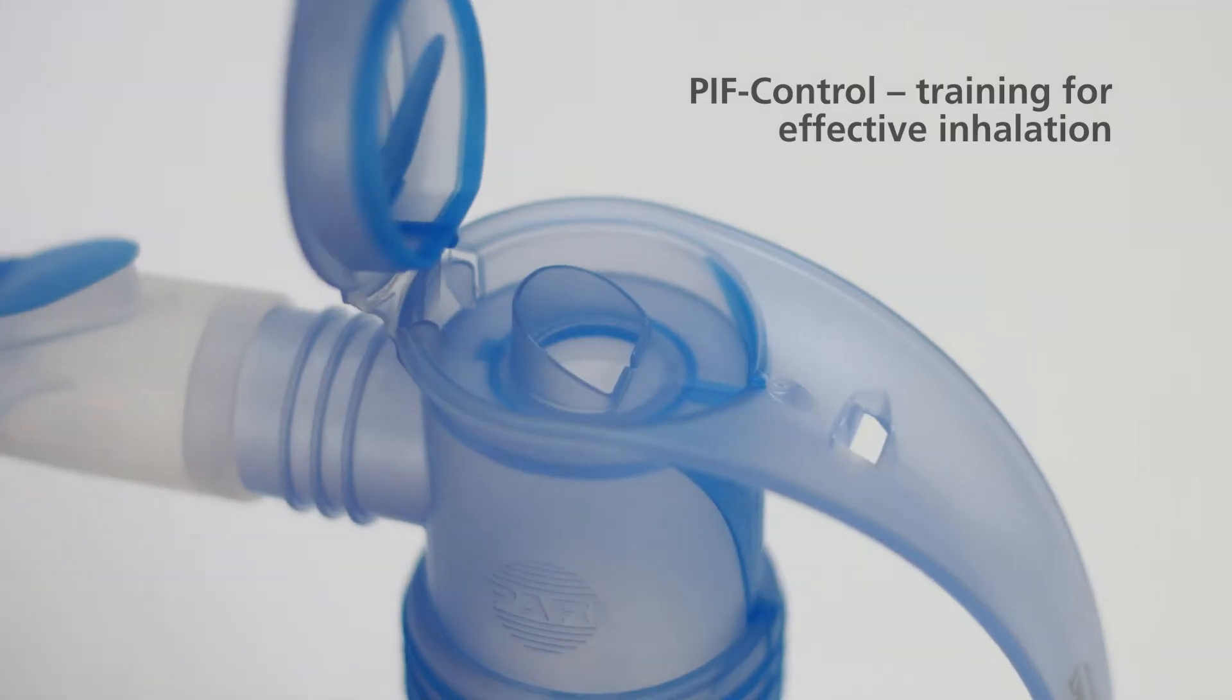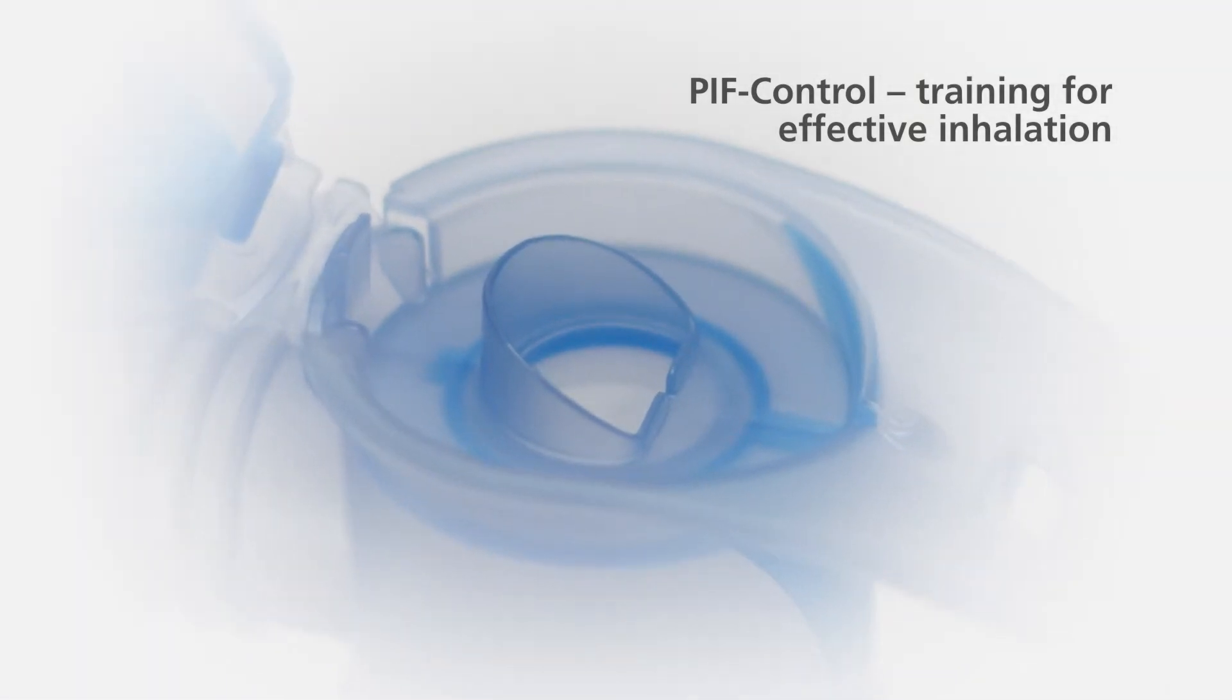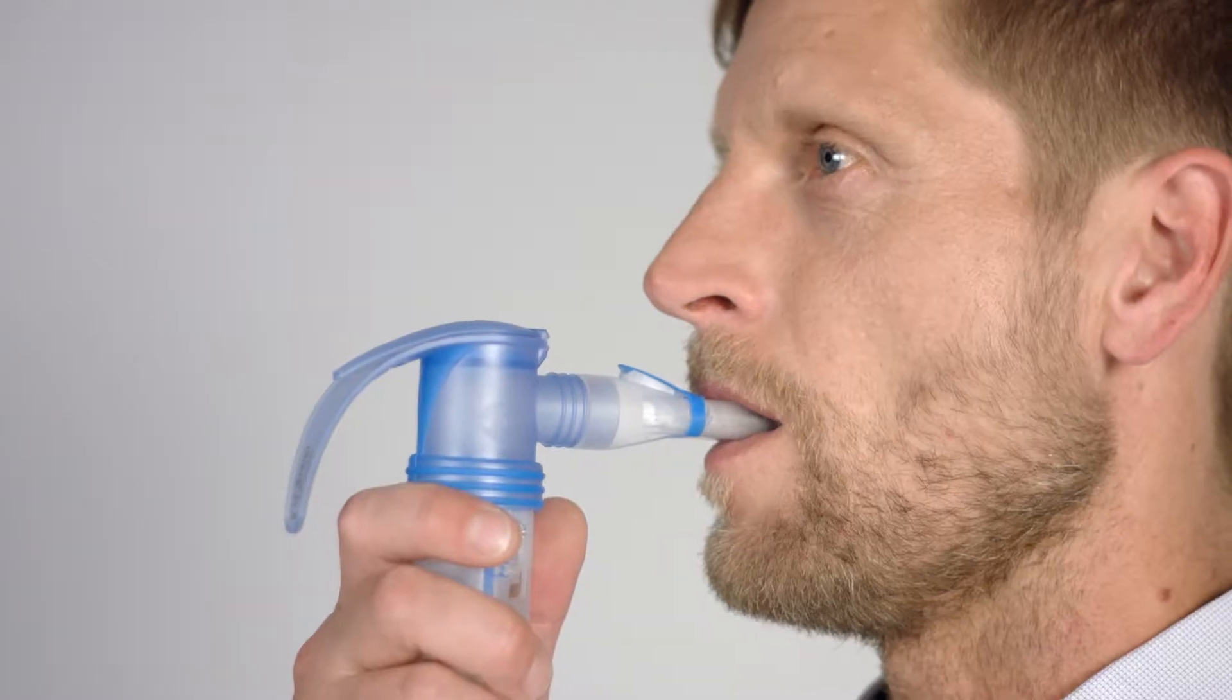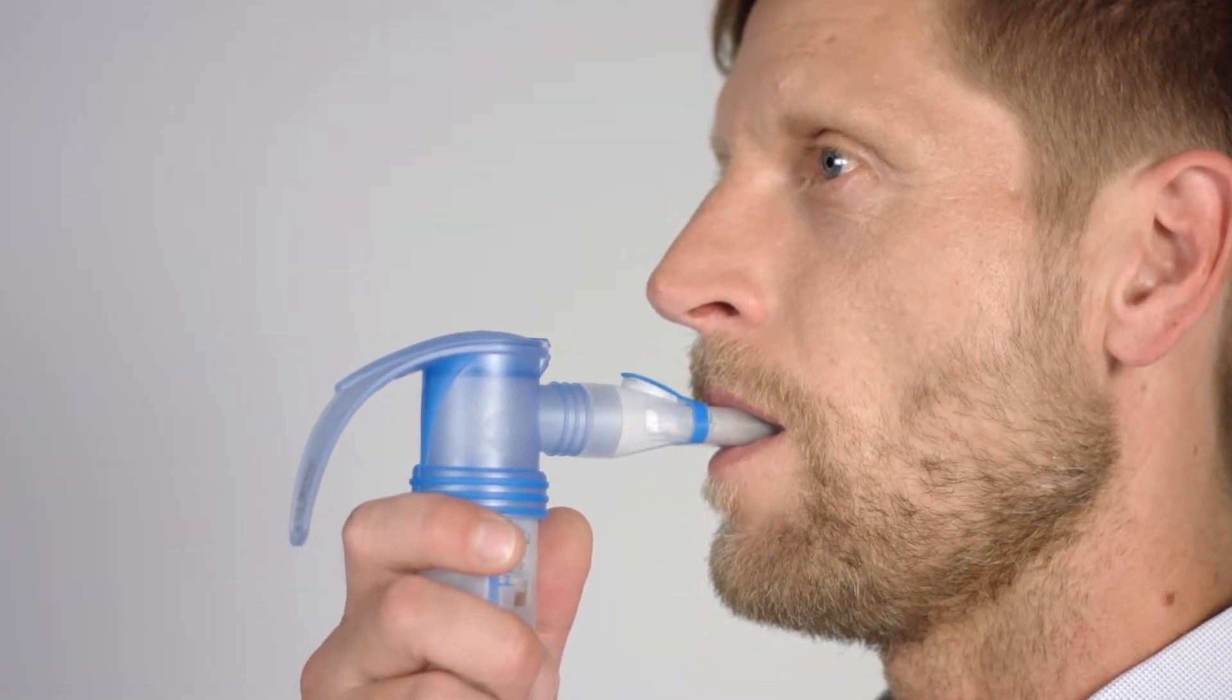If you inhale too quickly, the PIF control system generates resistance and emits a brief soft sound. As soon as you notice this, briefly stop inhaling and then inhale slowly again.